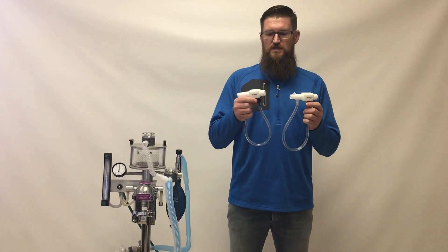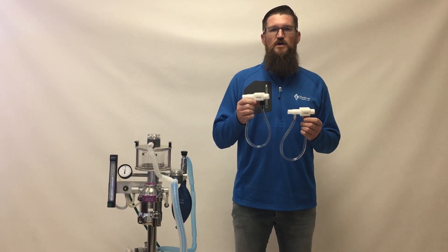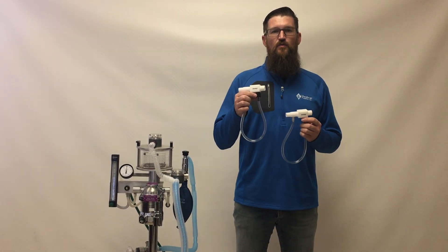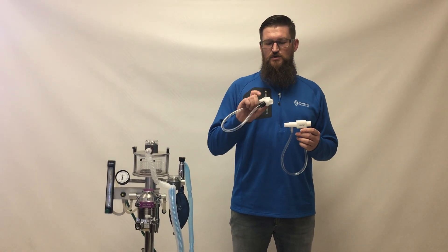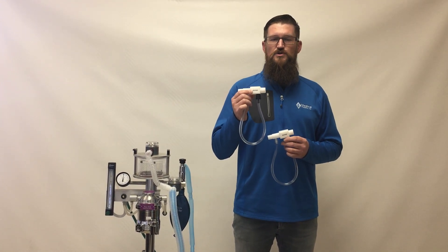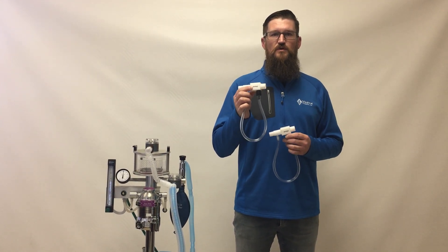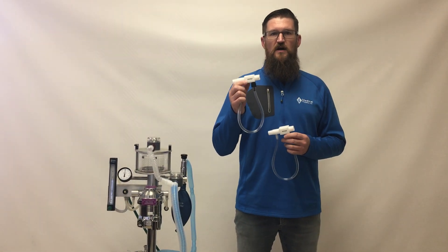These valves are designed to relieve at that preset pressure. Centimeters of water pressure is the common unit of measure for circuit pressure in an anesthesia machine. The Safety 20 is your most commonly used valve — 20 centimeters of water pressure is the maximum you really want your circuit pressure going to, and anything above that will be relieved by this valve.